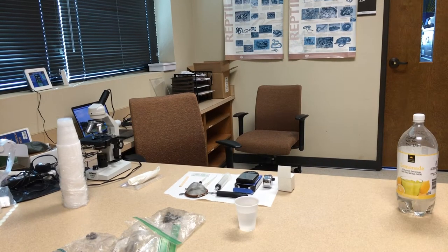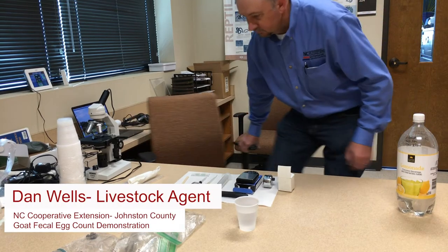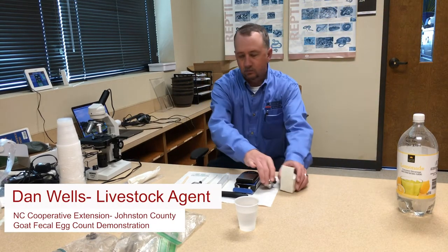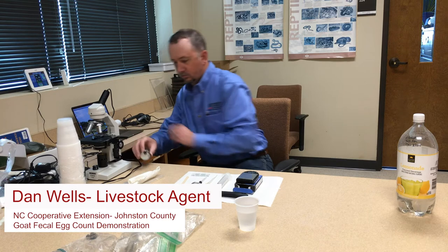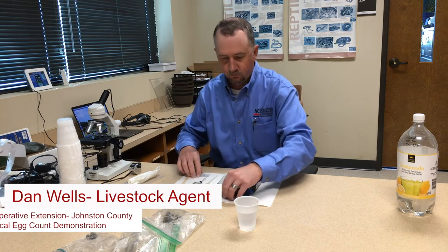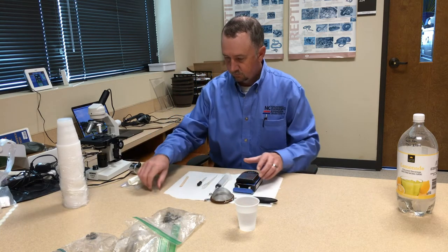In this video, I'll be demonstrating and discussing how to perform a fecal egg count. This is a very important procedure for estimating parasite infestation in small ruminants and other animals.